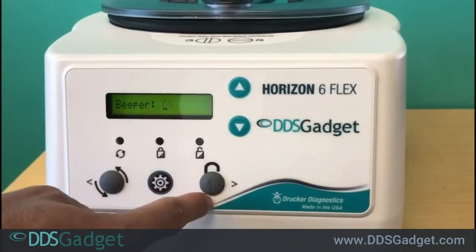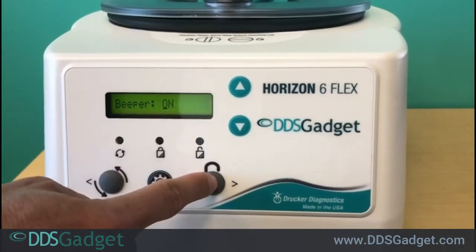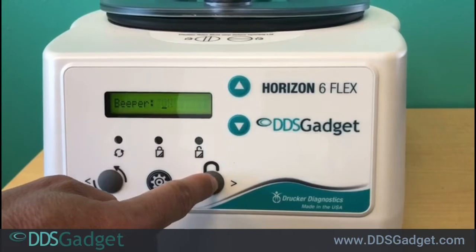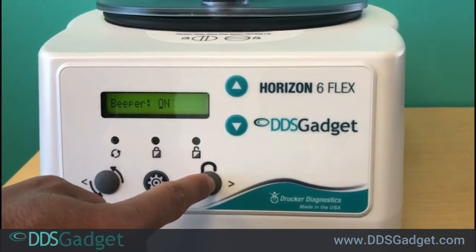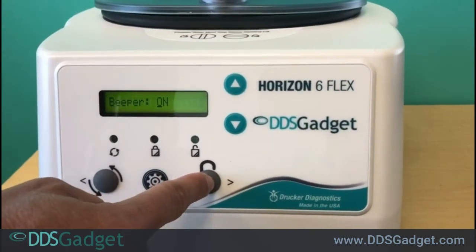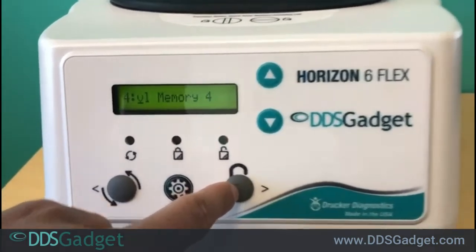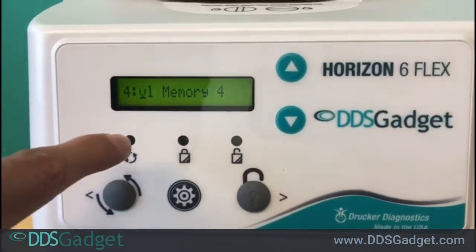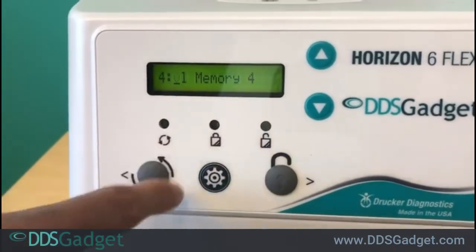You want to leave the beeper on. The beeper alerts you when the cycle ends, which is helpful for knowing when you can come back to the machine.